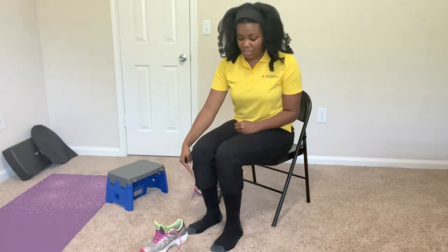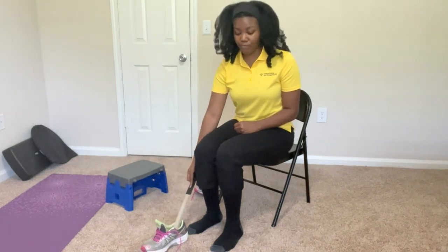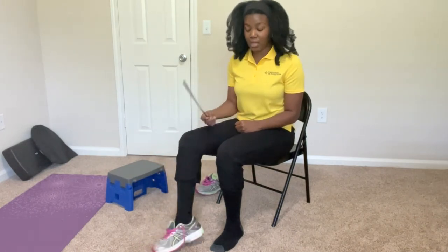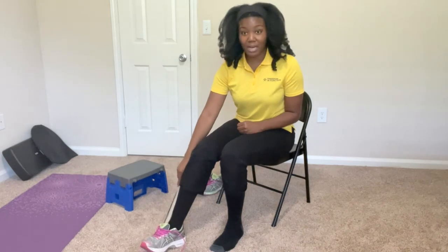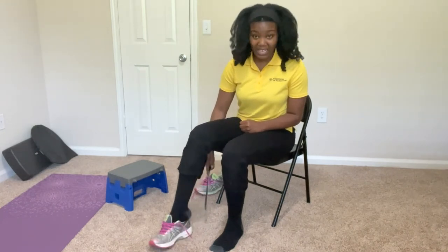For this particular one, I like to put it directly in front of the toes. You position the shoehorn first, lift up the leg, slide it in as much as you can, and then with the long-handled shoehorn, push it forward — and my heel is in. Now, some of you may be wondering why I did it like that rather than putting the foot in first and then using the shoehorn. The reason I didn't do it that way — even though I can do it both ways — is one, sometimes the tongue gets pushed down a little bit more, and two, sometimes once your foot is in there and in the way, it gets harder for some people to get the shoehorn underneath where they can slide it under. But if it works for you, either way is fine.